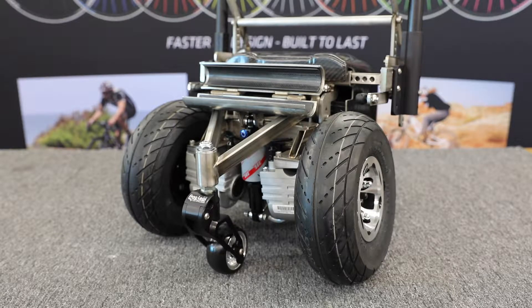Hello and welcome back to another Spinergy video. My name is Liam and today we will be going over what to do if you run your ZX-1 past the point where it indicates low battery voltage and ends up running until the battery voltage cut off. At this point there are two options in order to get back and recharge your ZX-1, and we will be going over those in this video.